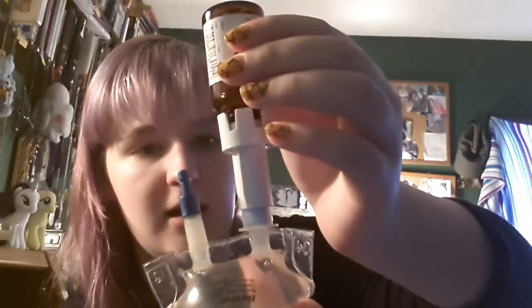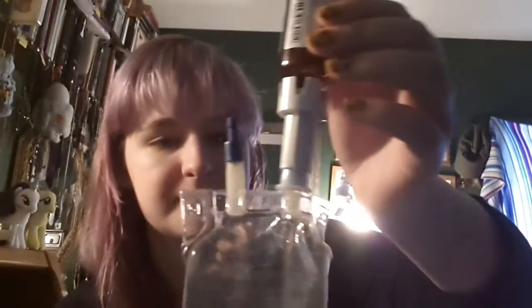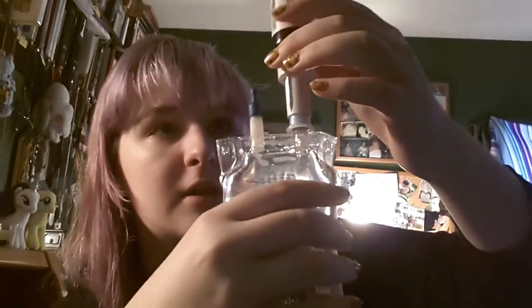Because — like in the other video that I did, I mentioned — if there's air in it, it creates a vacuum and shoves it through the tubing, which you don't want.